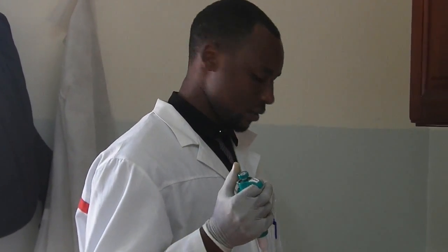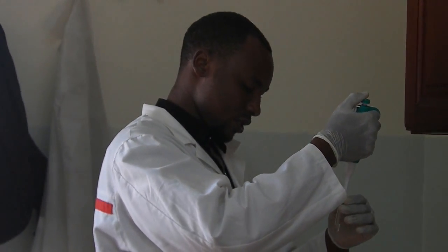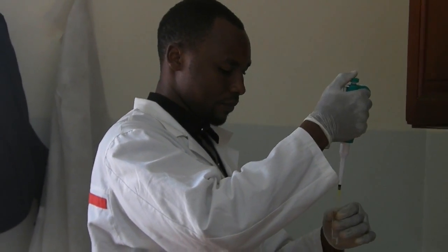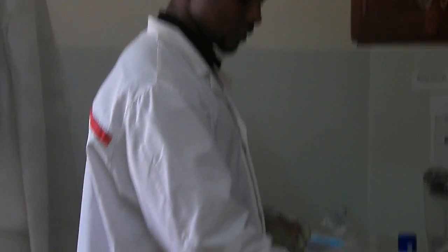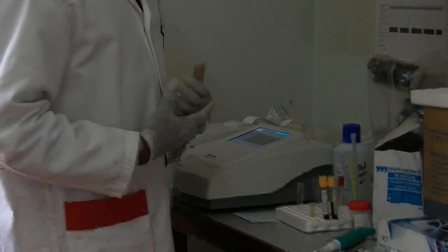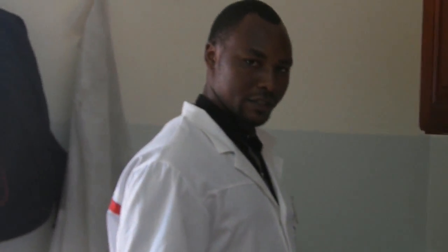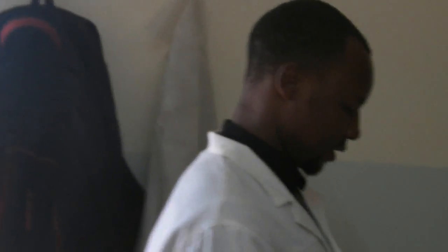We are going to time for 15 minutes. That's an incubation time during which the test will be ready to run. Introduce the sample from the bottom. We are going to wait for 15 minutes and it's going to be ready. I hope you are able to see this machine — right now it's in sleep mode, so we need to wake up the machine.